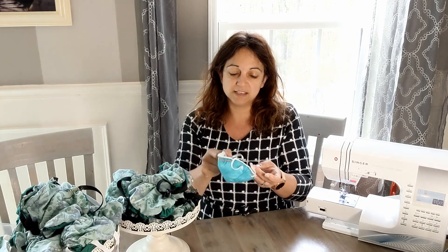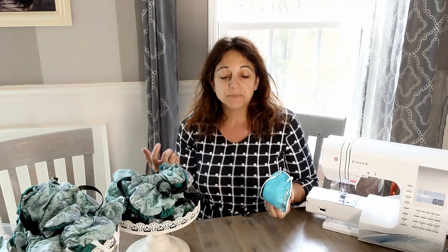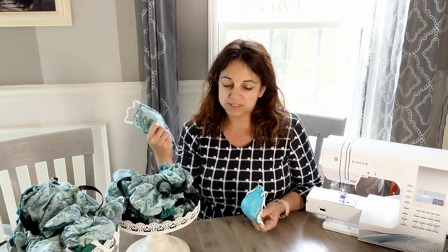We all know that with a real N95, we have to get fit tested every year to make sure there's absolutely a tight seal on the face. It has two strands of elastic that go around, there's foam on the inside, and we get fit tested to confirm the tight seal. Because if we're using a filter and we don't have a tight seal, we might as well be using something with absolutely no seal at all — because air, as we know, will find the path of least resistance.